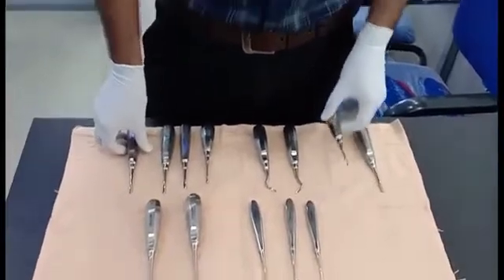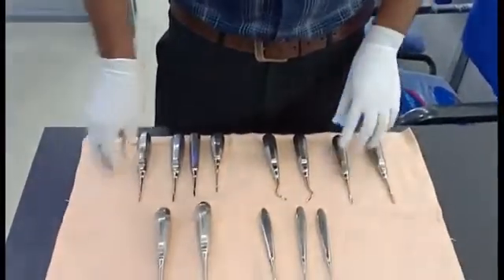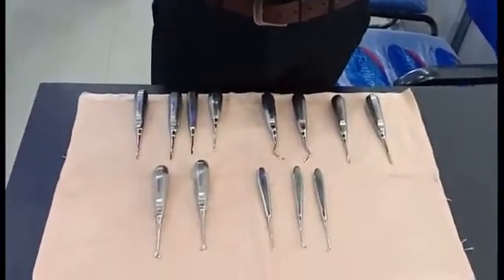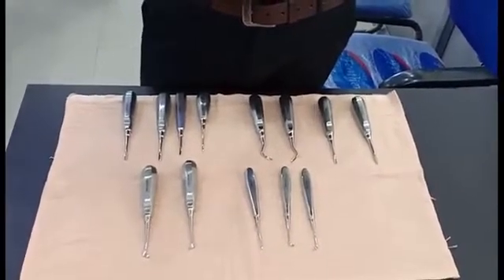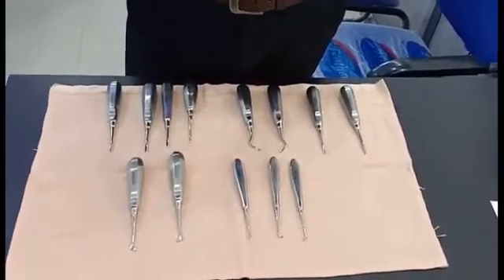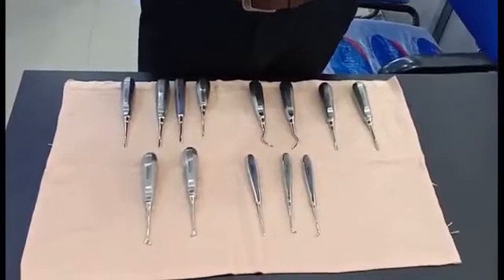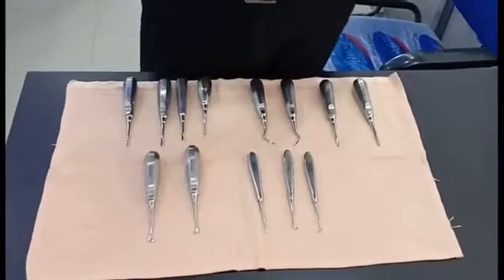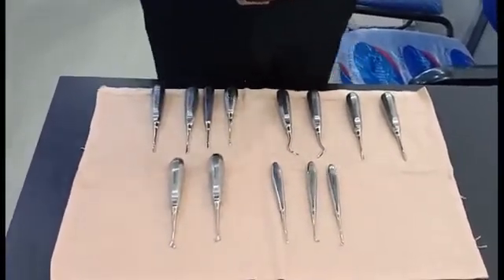Elevators help tooth extraction by providing proper luxation of the tooth. If properly luxated, the forceps can do the job very easily. Otherwise, if the tooth is not properly luxated, it might get fractured. Even if fracture happens, retrieval of root tips can be done easily with the help of these elevators. We have many varieties of elevators in dentistry.